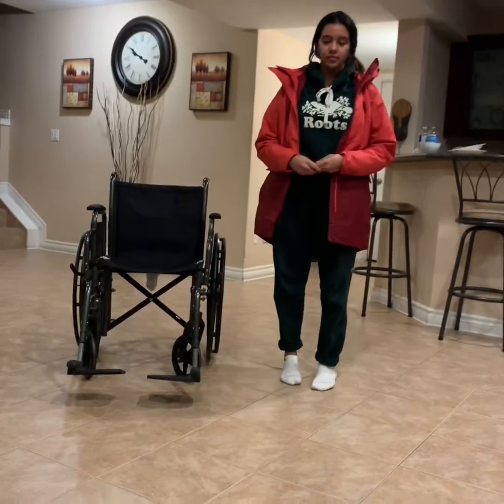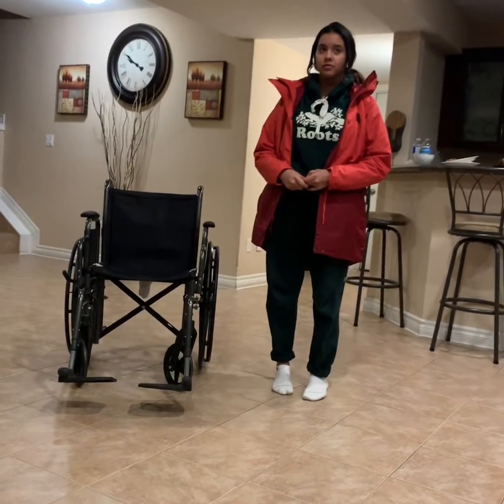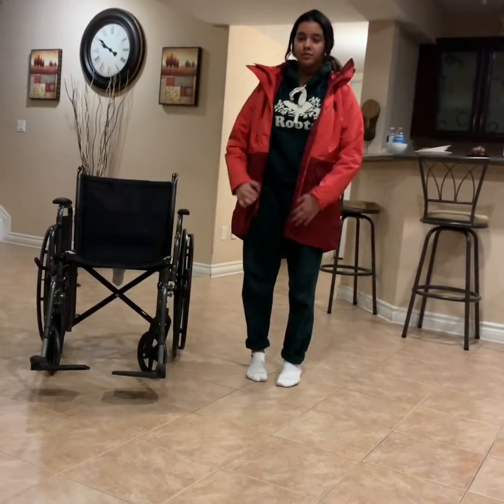Be careful with your clothing choices when operating a wheelchair. It is recommended to wear tighter clothing to prevent getting caught in the wheelchair. Like Nuha here, her coat is very baggy and will require her to zip it up or remove it if possible.